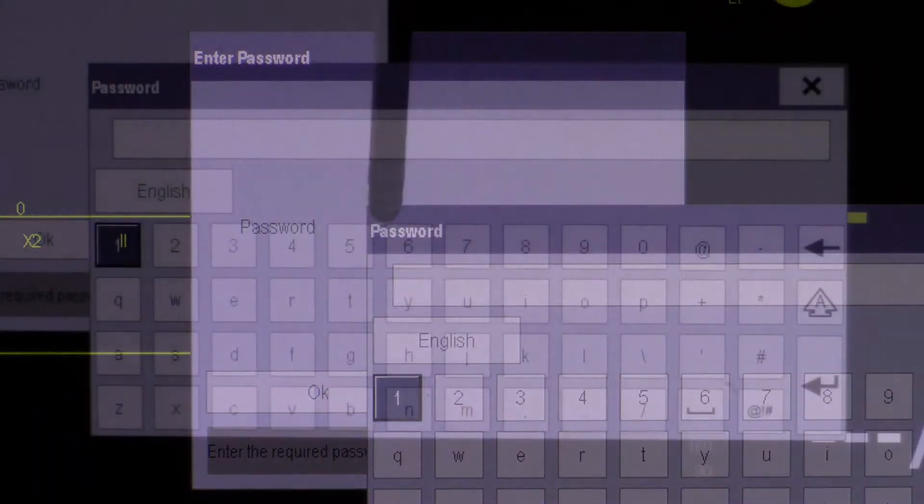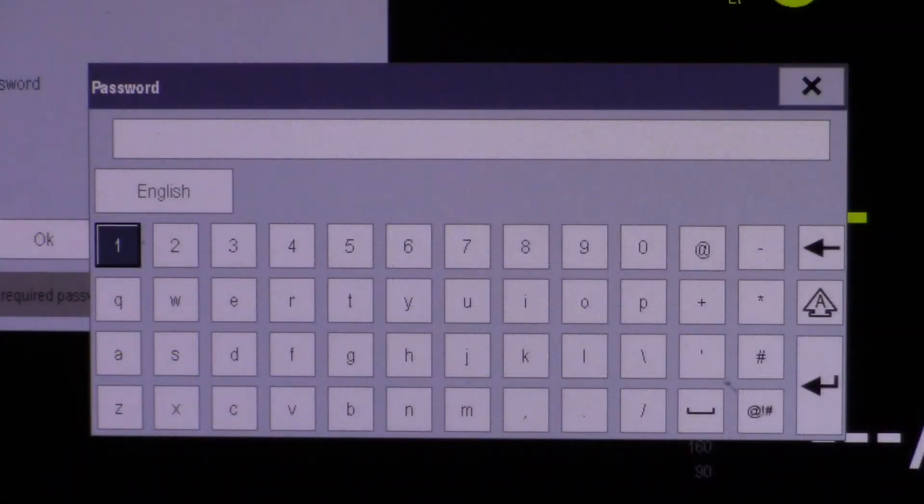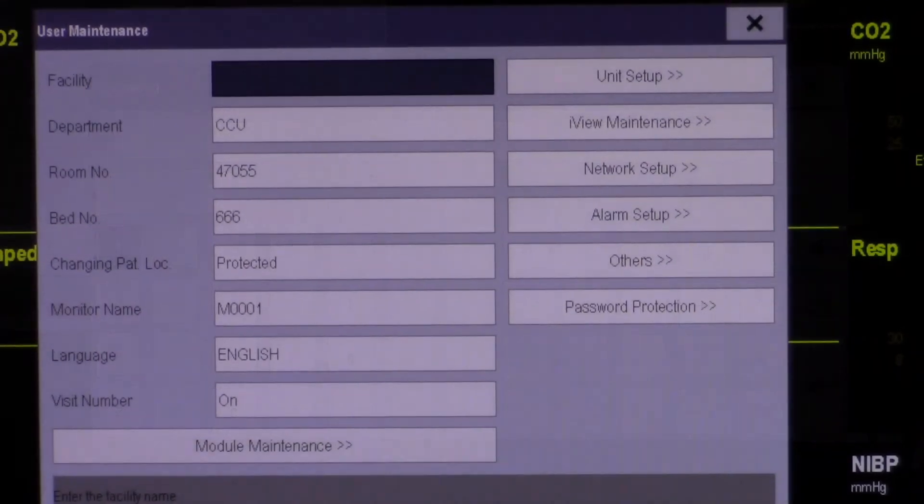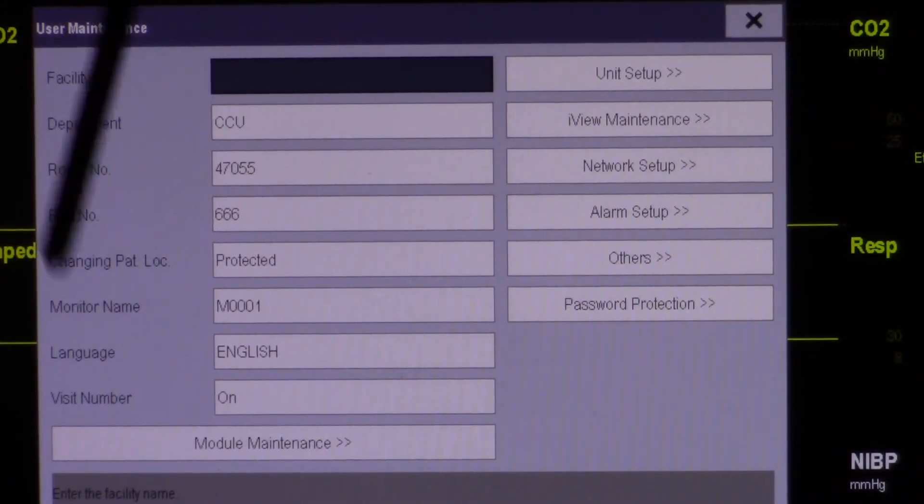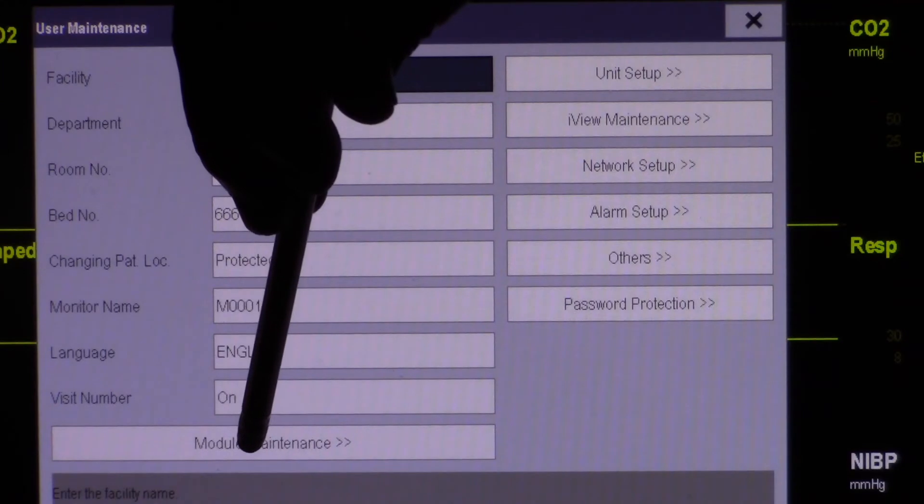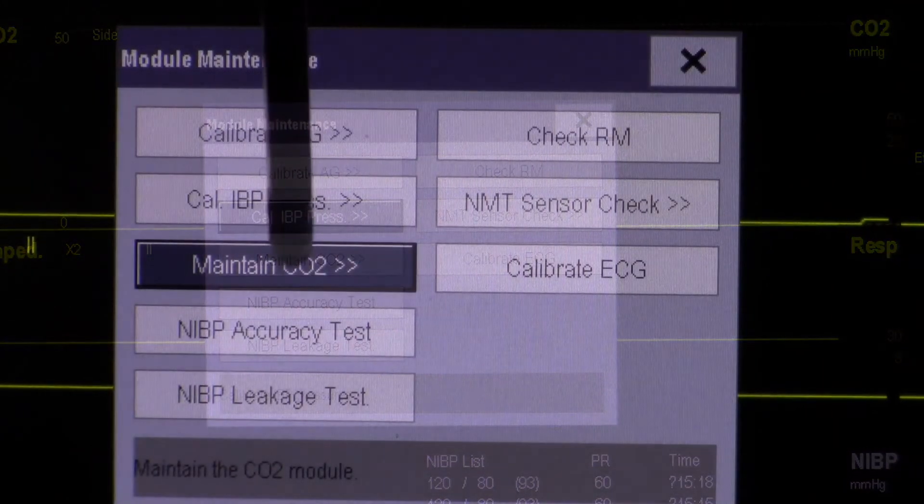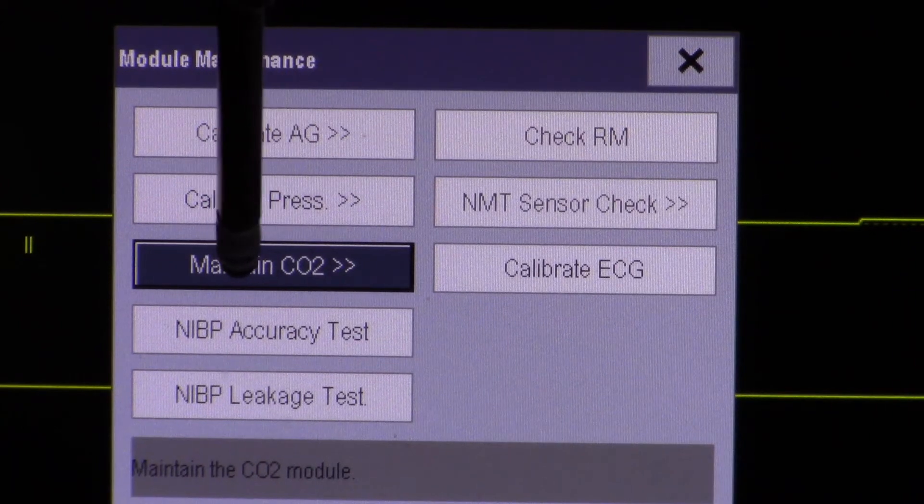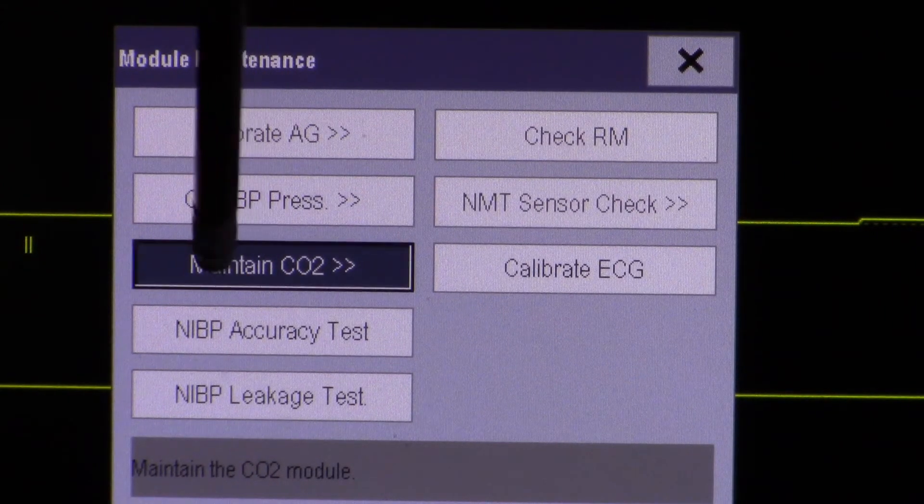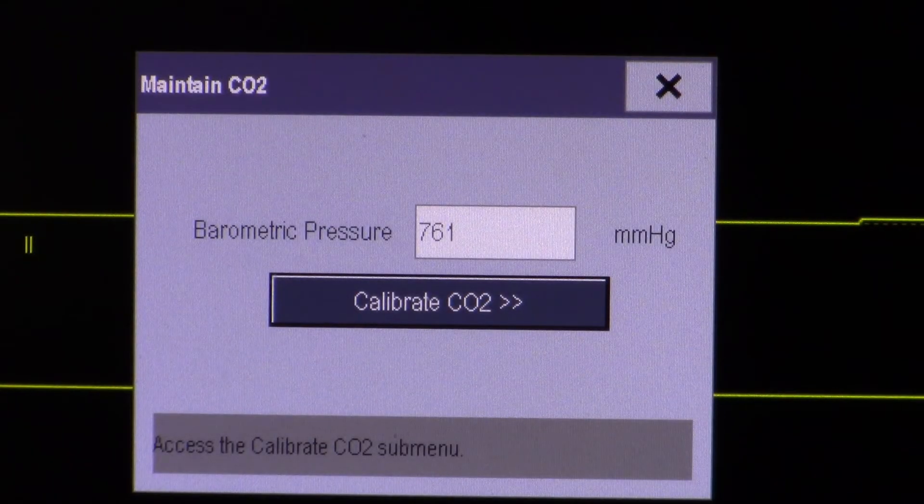Enter your local password or contact tech support for further assistance. Once entered, select module maintenance, touch maintain CO2, touch calibrate CO2.